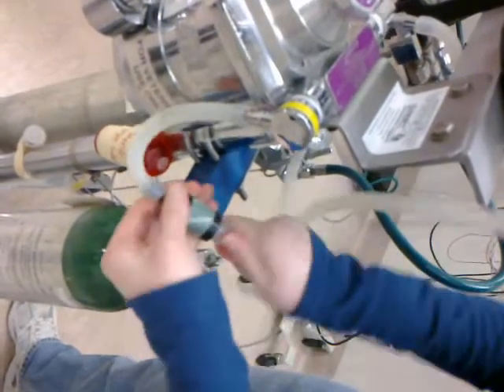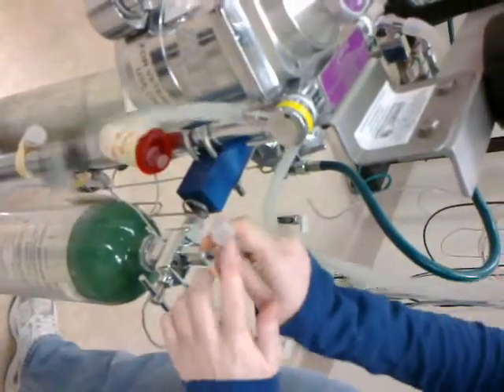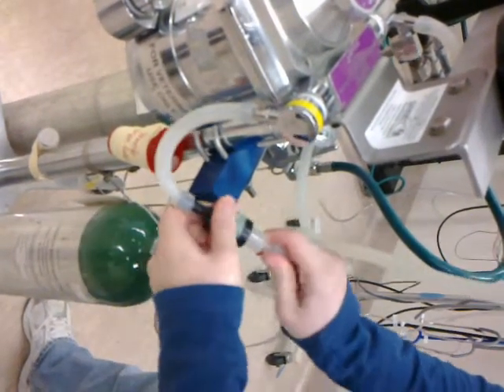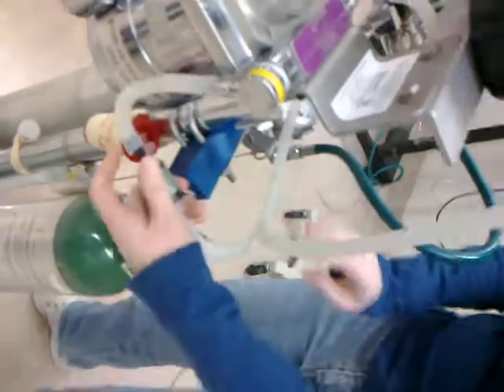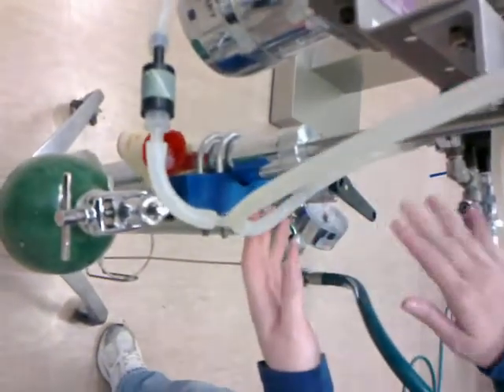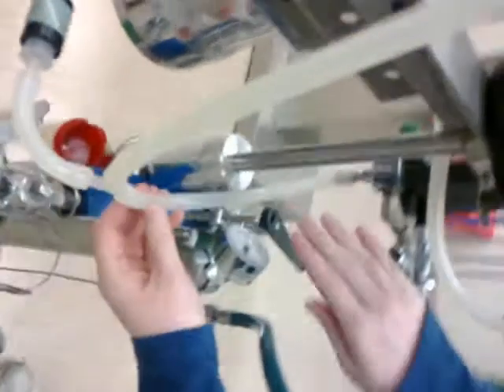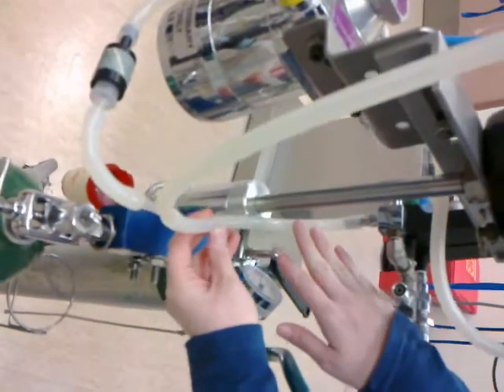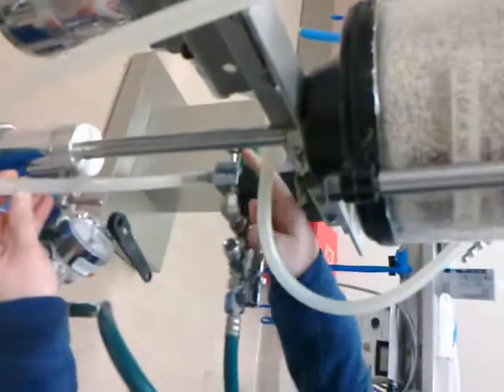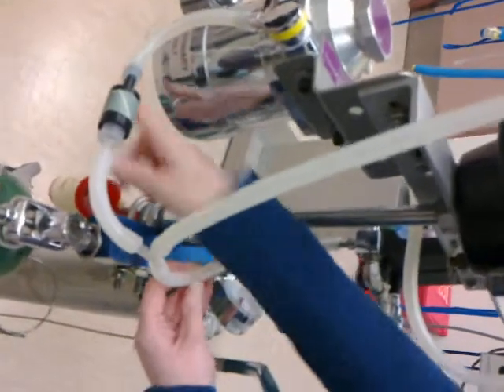Just look for the piece that looks just like this anytime on any of the machines. So we attach it here. In the back, you see it has a free system here. This tube here is for the oxygen fast flush valve to bypass the vaporizer, so it goes from the valve in front straight through into the system and straight into the patient.